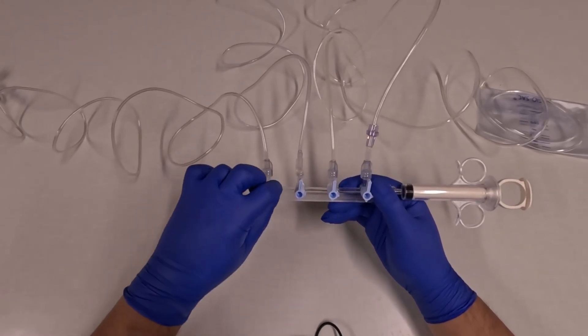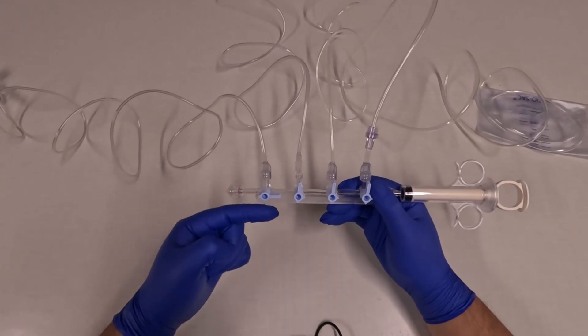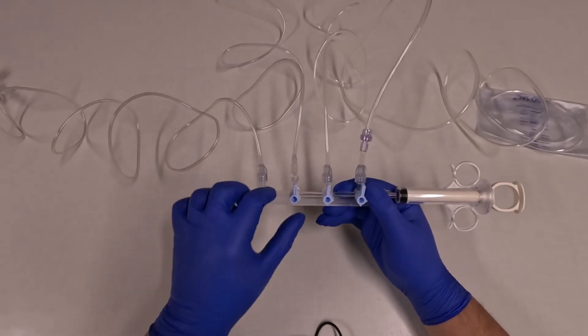When the stopcock is closed to a channel, fluid will not flow through it. When the two sides are open, fluid will flow.